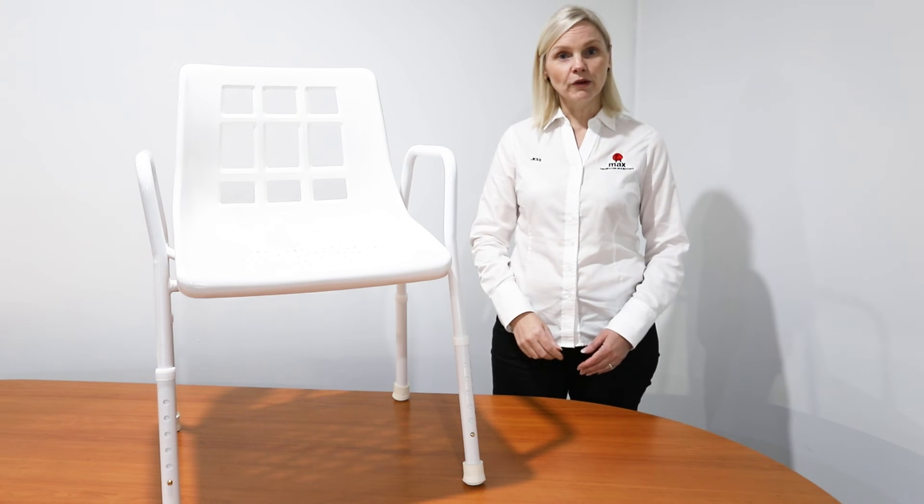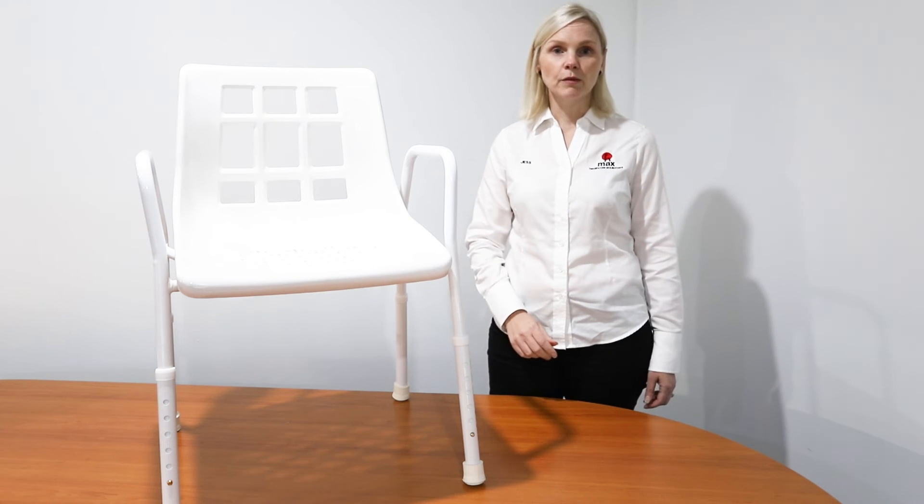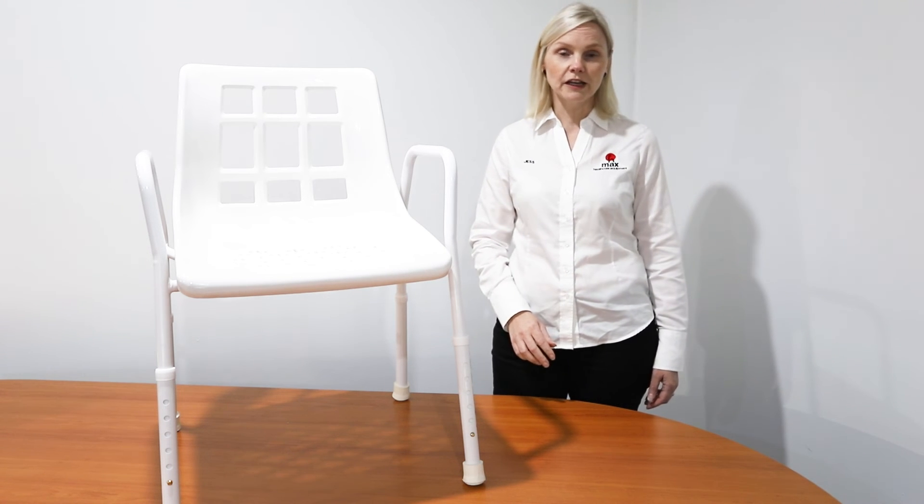The shower chair weighs 3.7 kilos and has a maximum user weight of a generous 125 kilos.